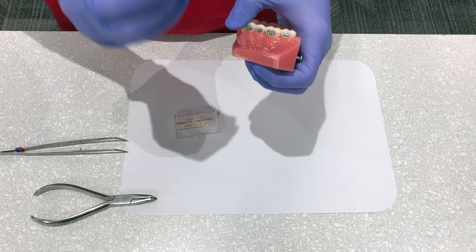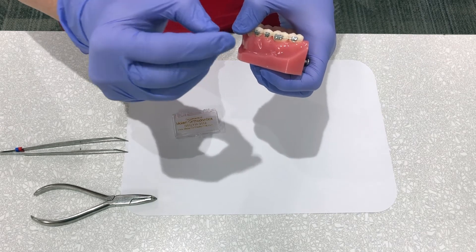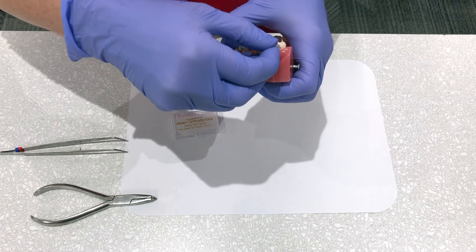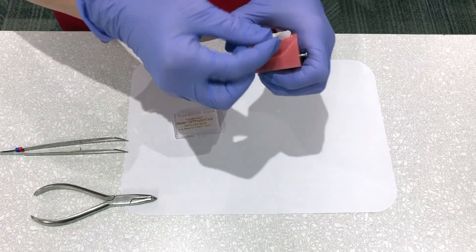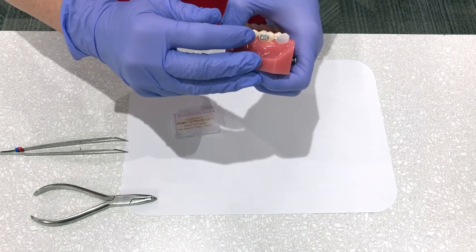You can use wax to cover up the piece of wire. Roll it between your fingers to get it pliable, then sandwich it all the way around the entire piece of wire that is poking you. This will make you more comfortable.